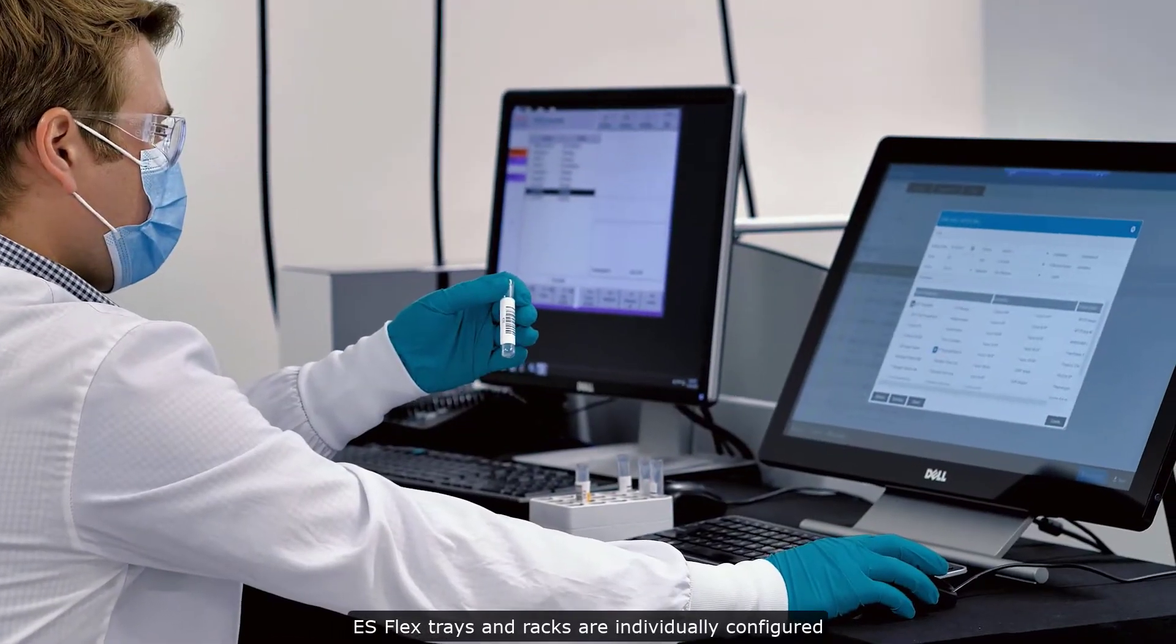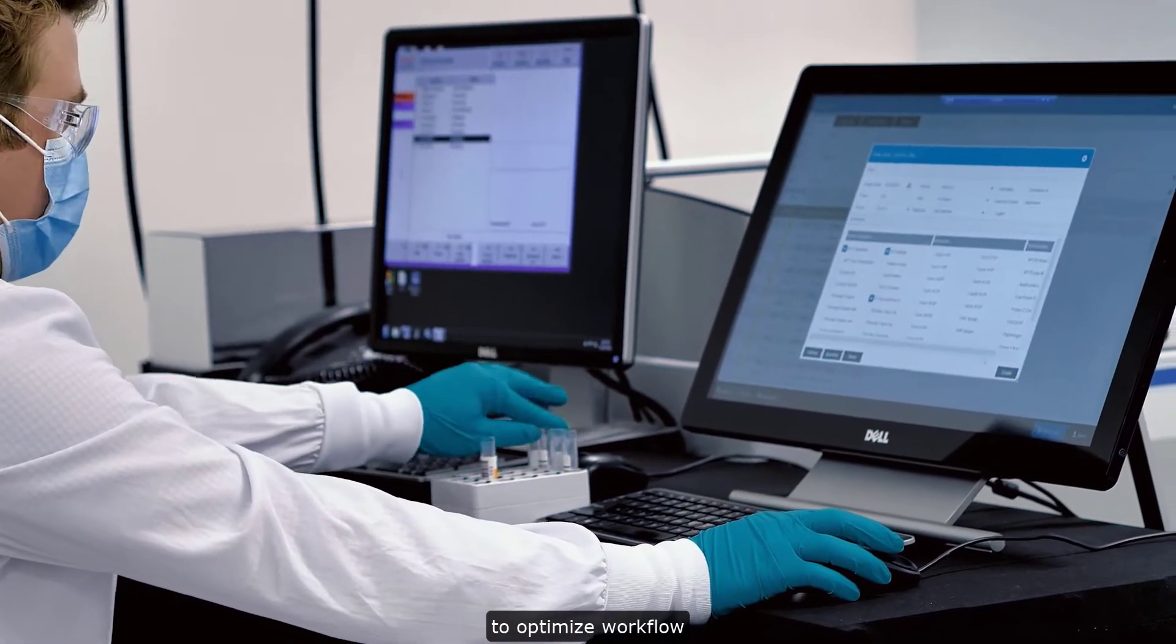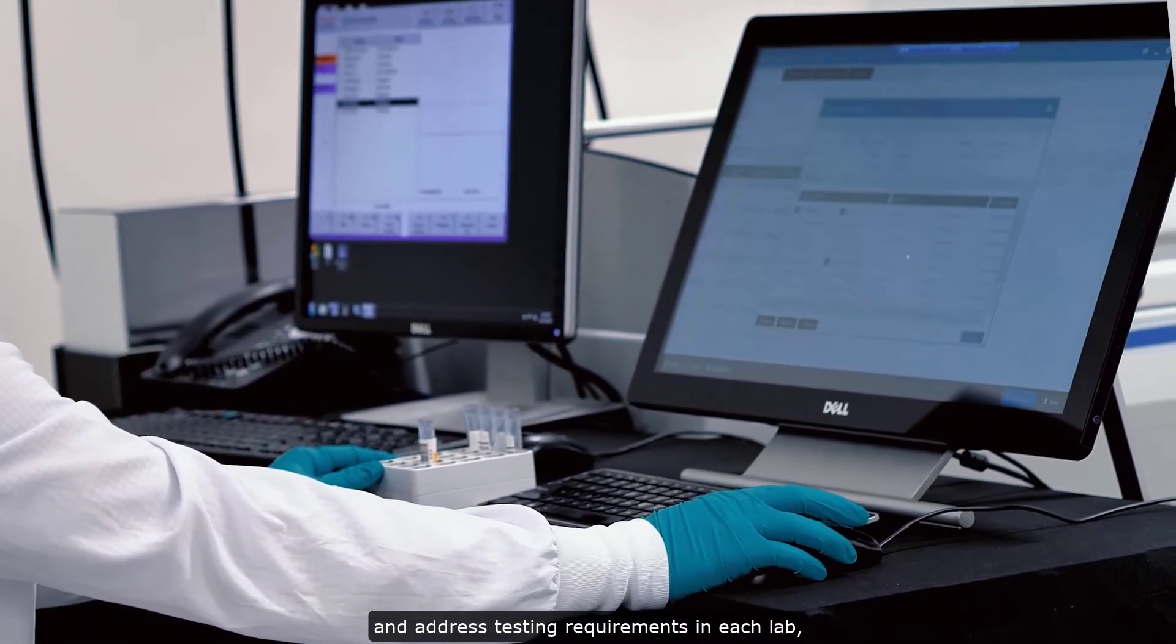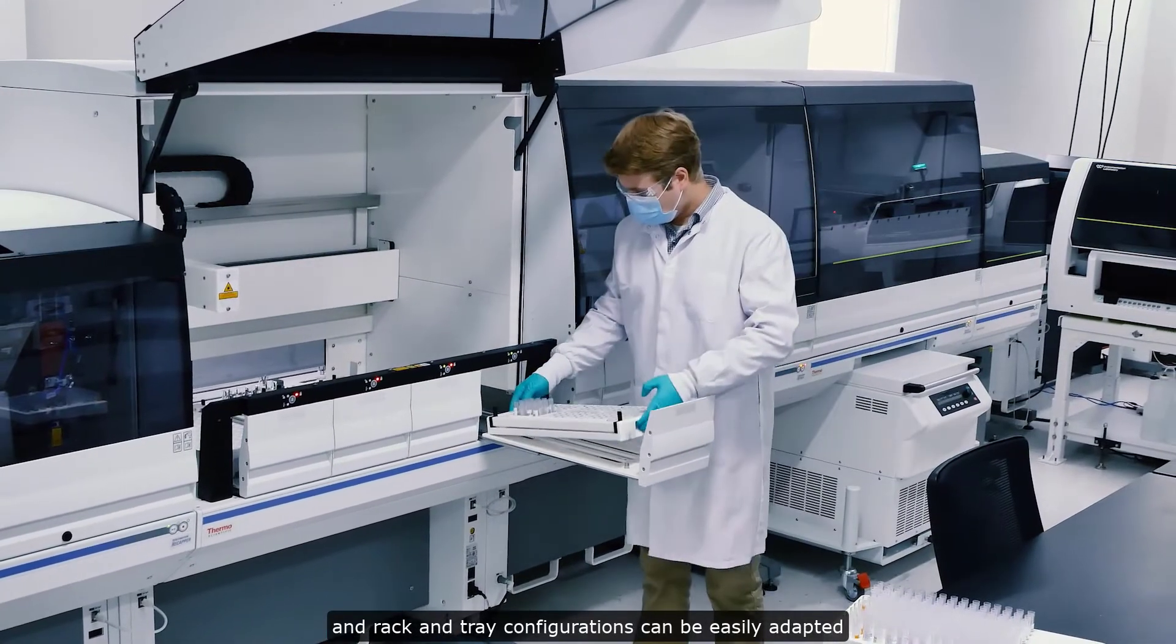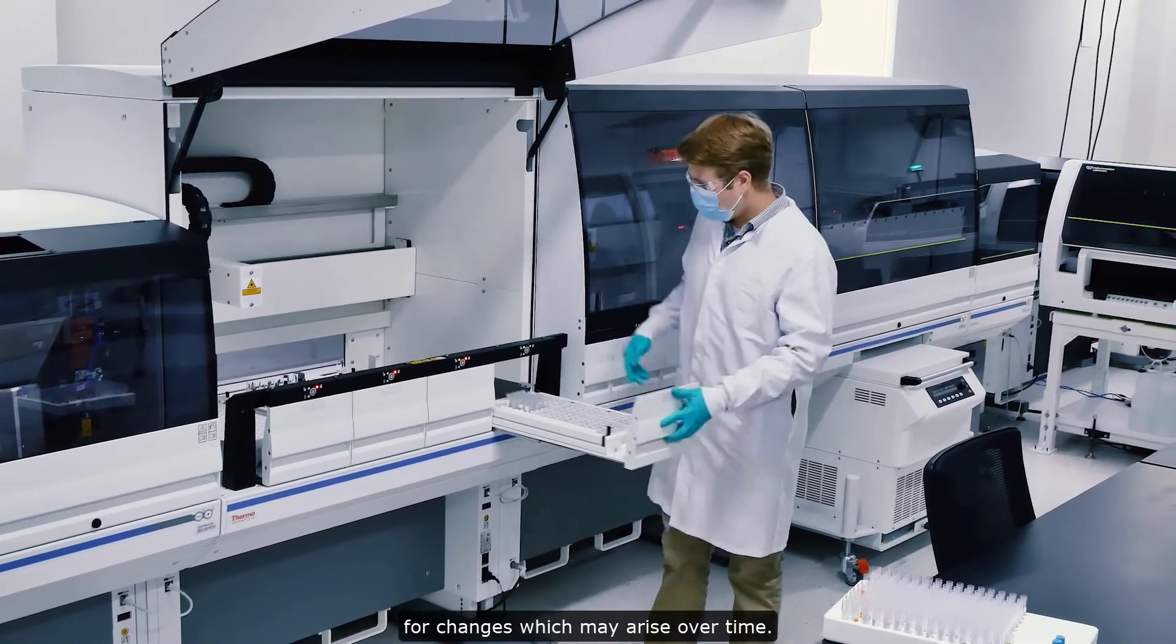ESFlex trays and racks are individually configured to optimize workflow and address testing requirements in each lab, and rack and tray configurations can be easily adapted for changes which may arise over time.